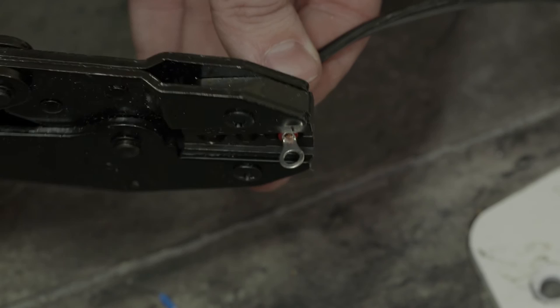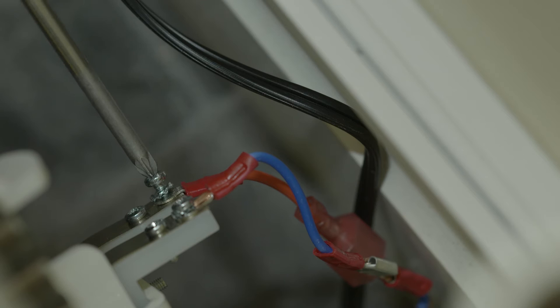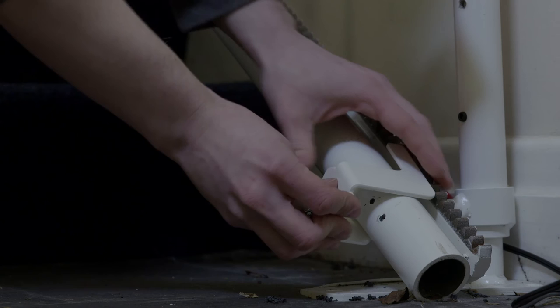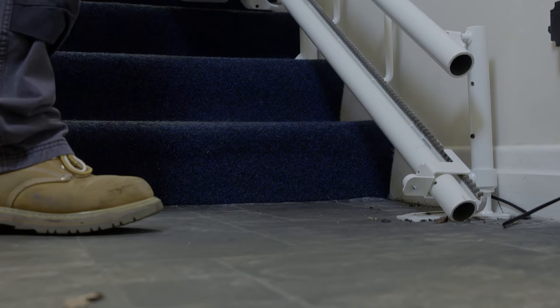Return to the rail and fit the charge points to both the top and bottom. Connecting the core cable at both ends, use the diagram on page 18 of the installation guide to ensure correct polarity. Once you are happy with the positions, fasten the final end stop brackets at the top and bottom of the rail.